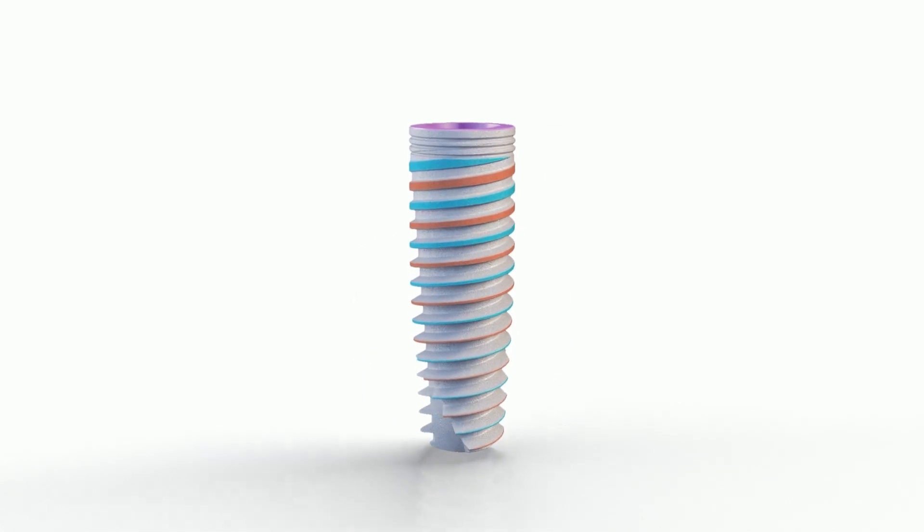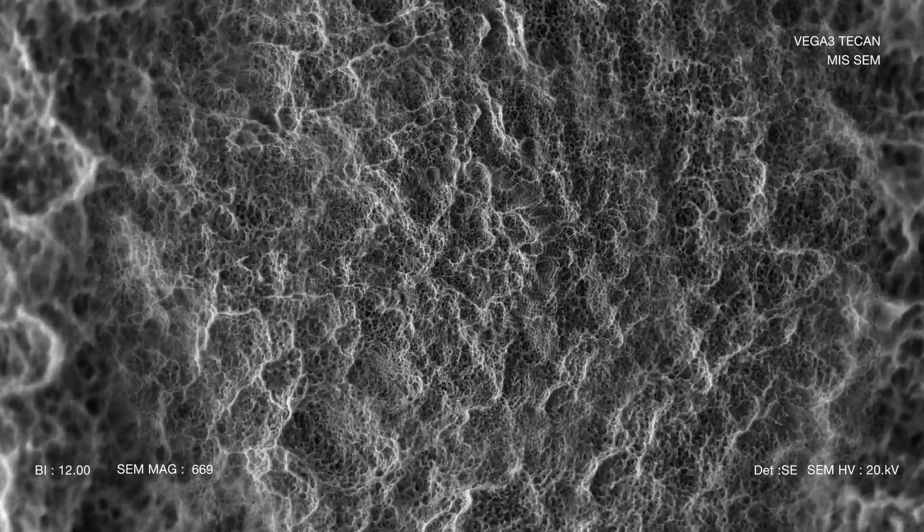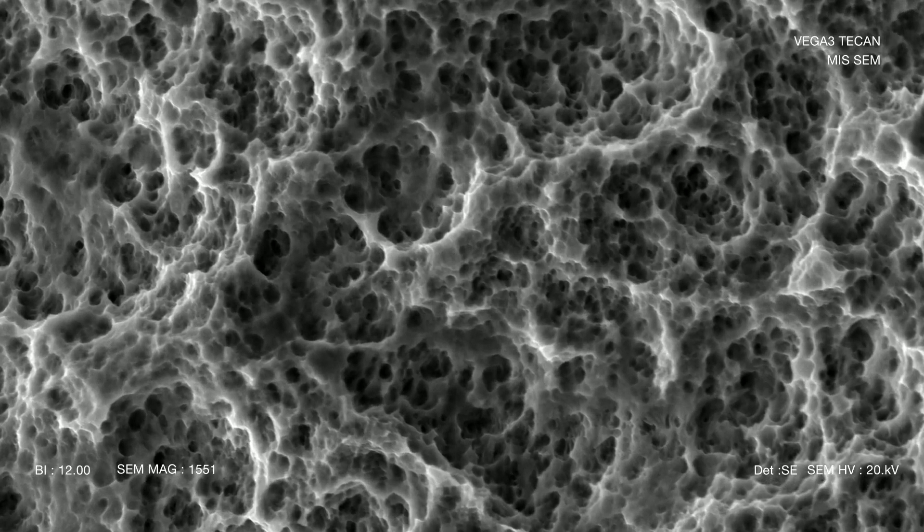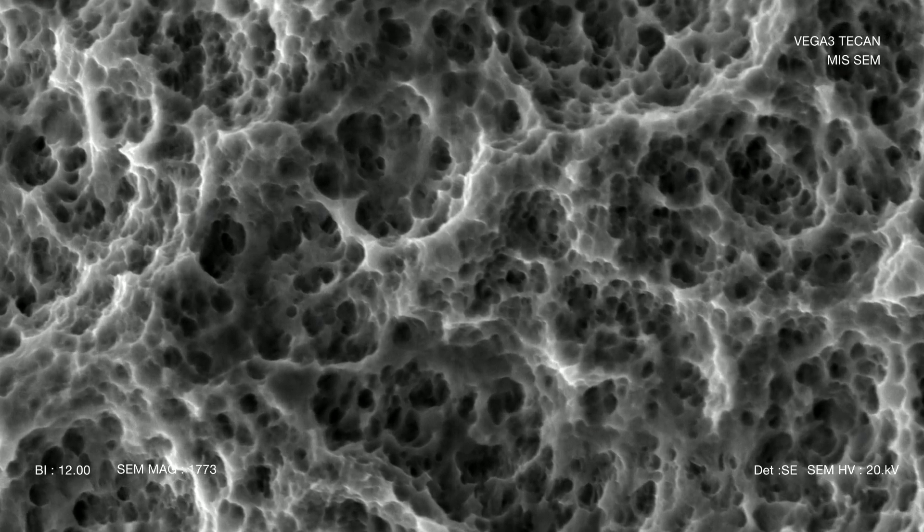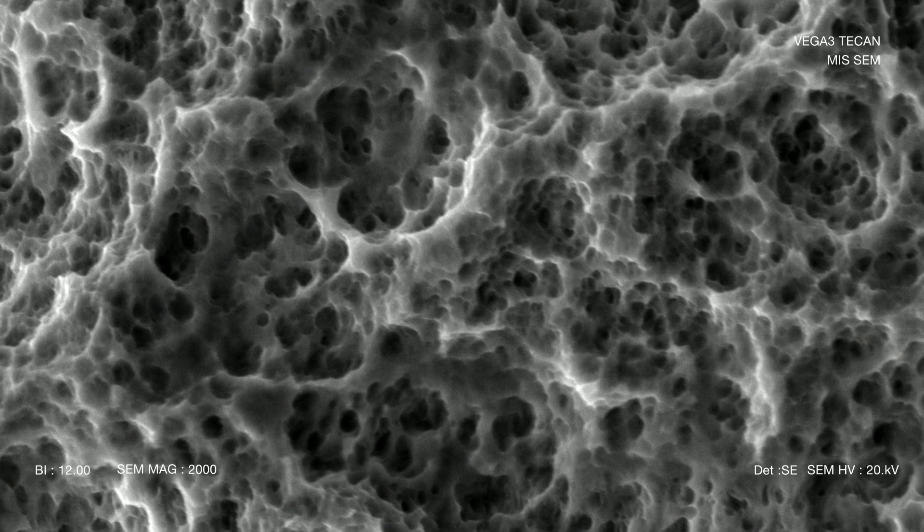The implant's surface roughness and micromorphology are a result of sandblasting and acid etching. It has been documented to be highly osseoconductive in type 4 bone. The MIS surface technology has been acclaimed for its high cleanliness, making it one of the most outstanding surfaces on the market.